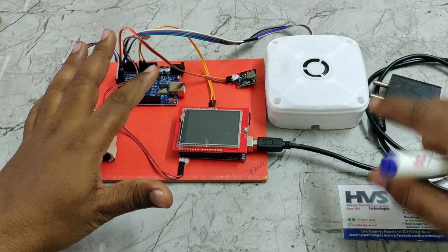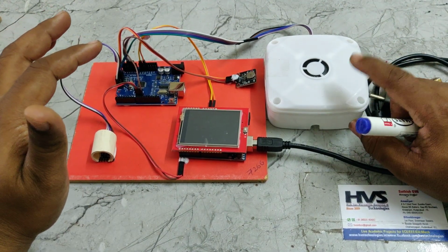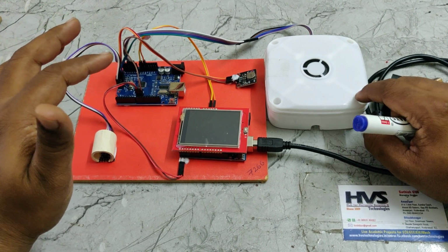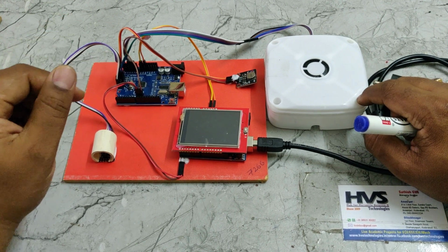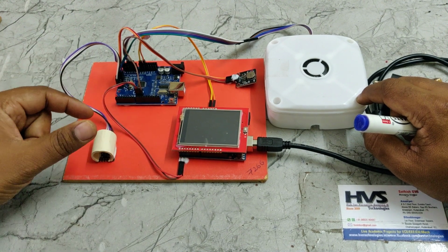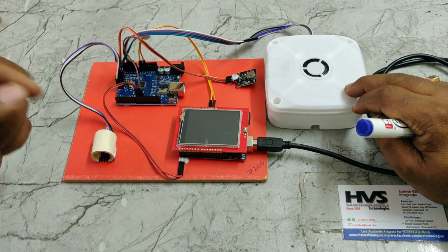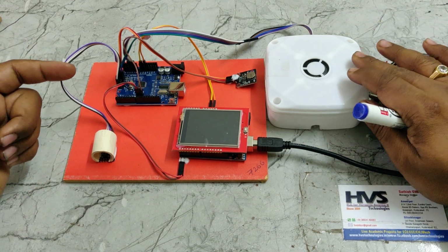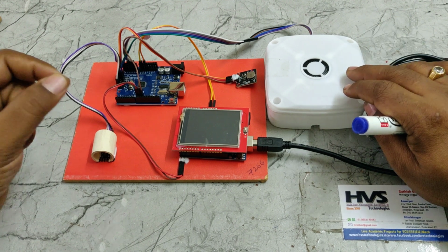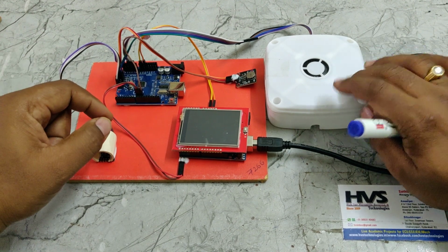Coming to the fourth feature, we are providing audible alerts through voice from the speakers. The speaker will provide audible alerts along with an announcement of the levels. For example, if the glucose level is low, the speaker will announce that the glucose level is low. There is a normal voice message, and for high glucose levels, it will announce that the glucose levels are high. So these messages can be announced from this speaker.